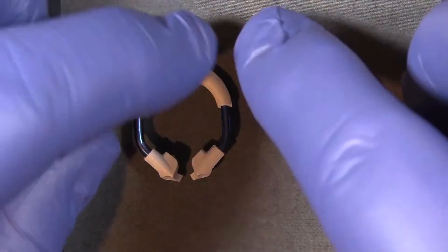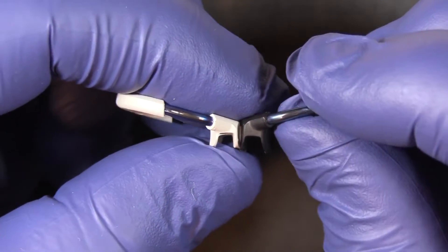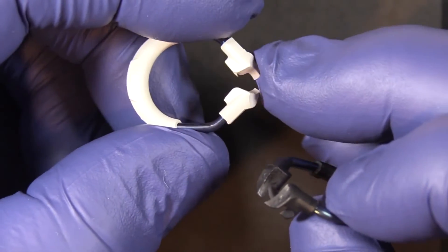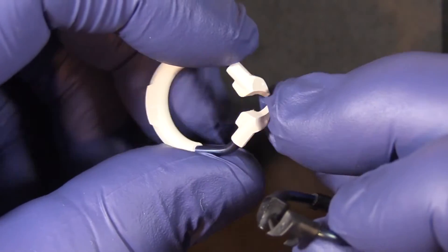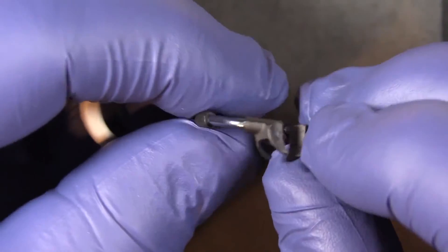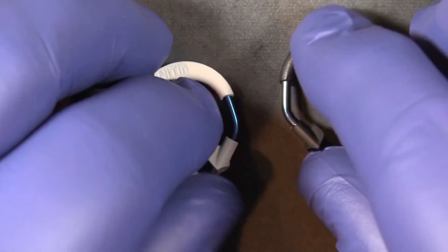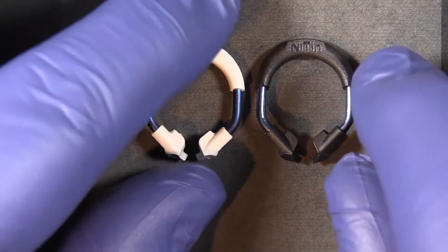The rings are really pretty ingenious. The two colors represent the two sizes — the black one is longer and the white one is shorter. The shorter white ring is for short teeth, pedodontic applications, and malpositioned teeth, while your typical molar application would use the black ring.